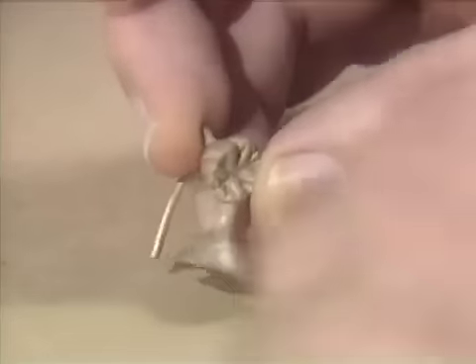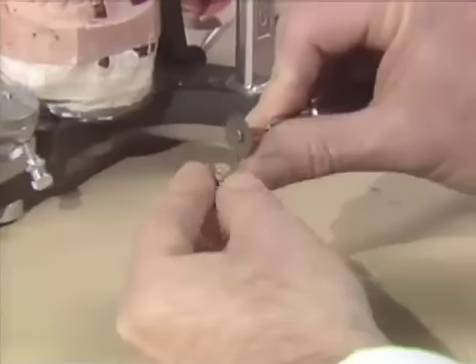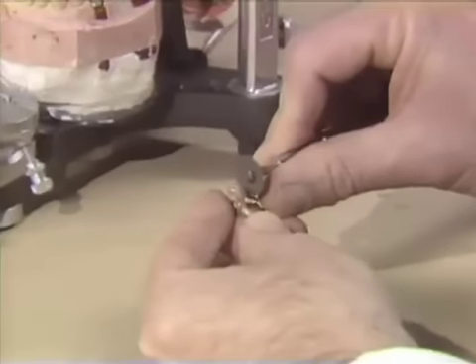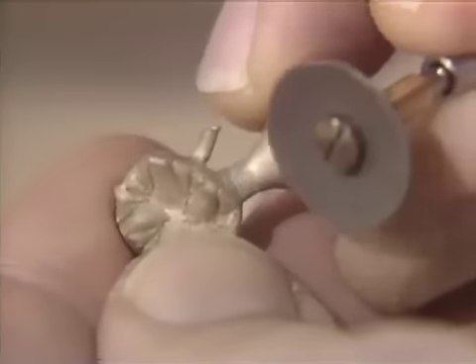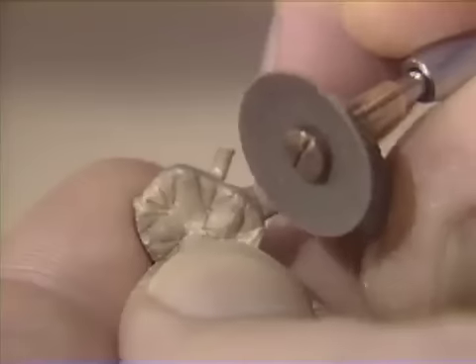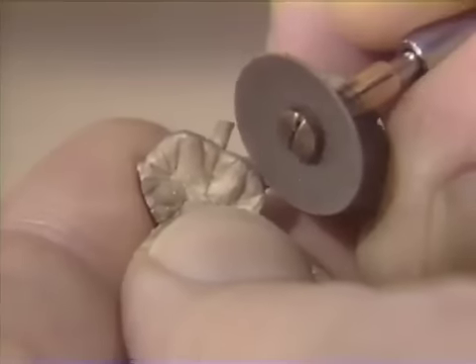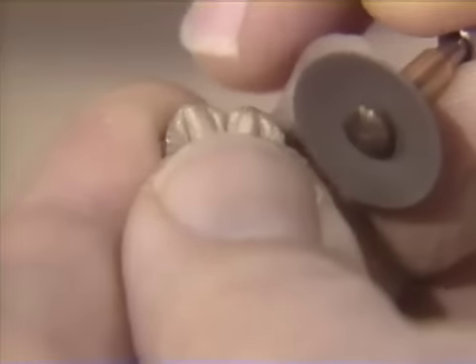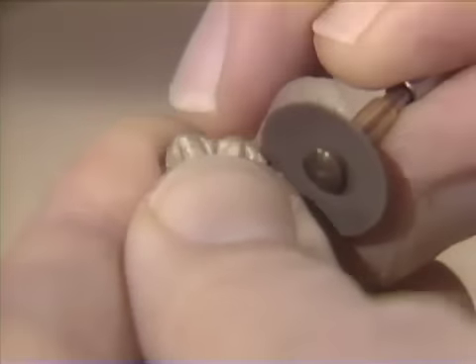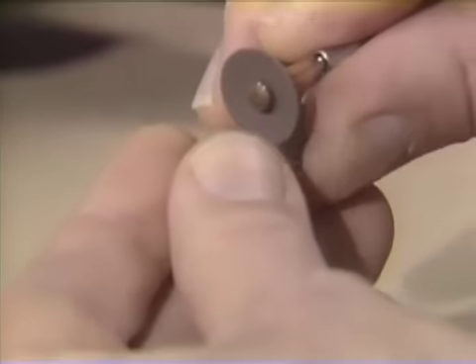We're now going to take the vent and the sprue off of this casting and try it on the model. When you remove the sprue from the pontic, be sure you do not create a flat area. This is a very large sprue and if you just go in here and start cutting directly on it, you could create a negative surface or a flat surface. So be sure that you come at this and leave enough of that sprue on so that you can get back to your original contour. It does take a little bit of gold, but it is something that you do have to do.